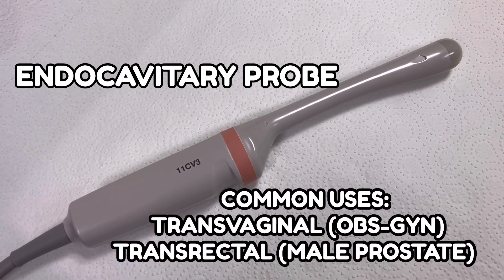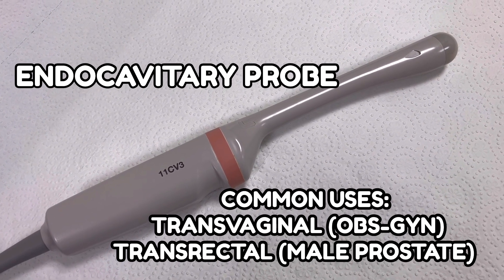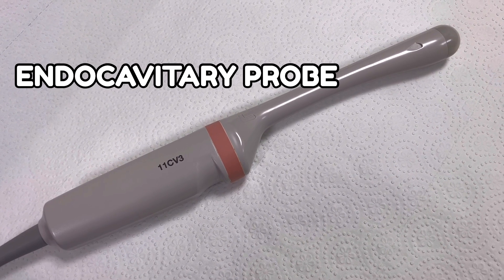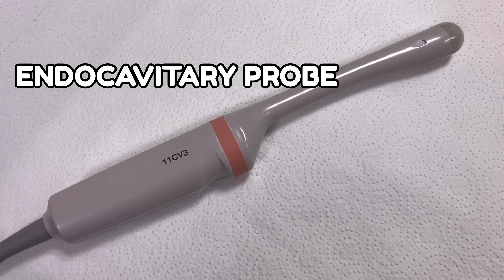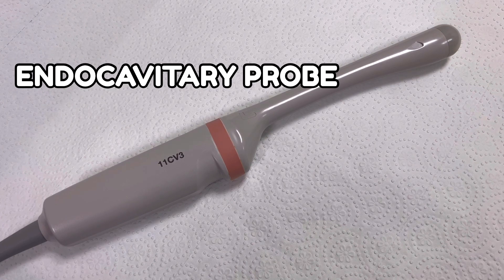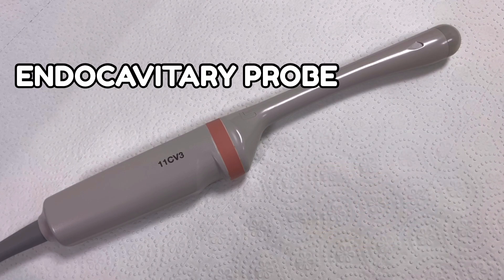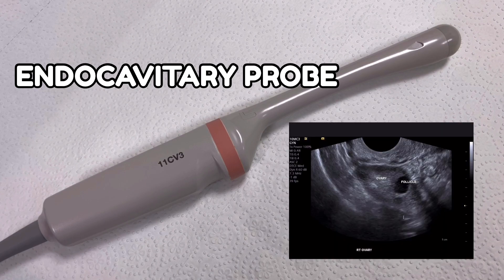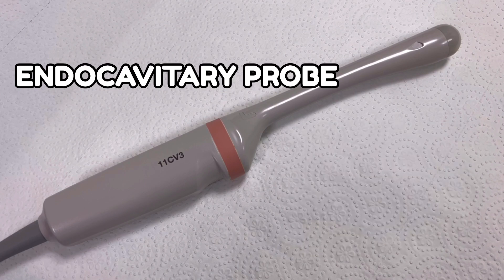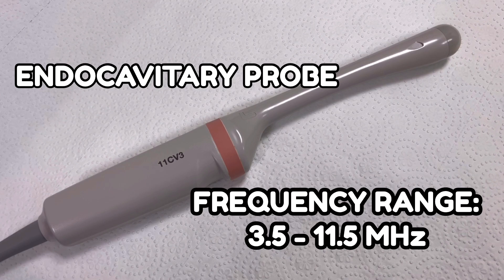The next type is the endocavitary probe, also known as the transvaginal probe. It is also used in male prostate ultrasound via the transrectal approach. Endocavitary probes have a U-shaped lens and array, along with a much longer probe handle. They are used to scan inside the body and have a smaller depth range but a wider field of view compared to convex probes. Frequency ranges from 3.5 to 11.5 megahertz.